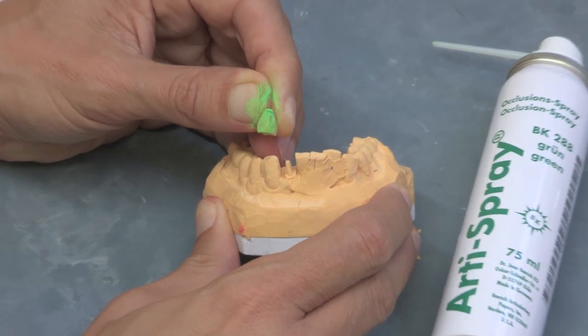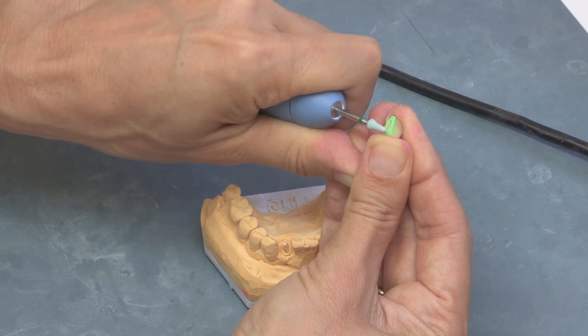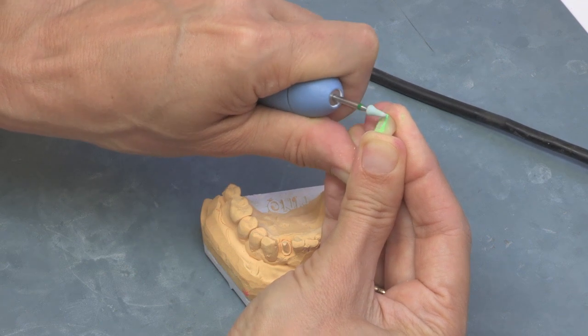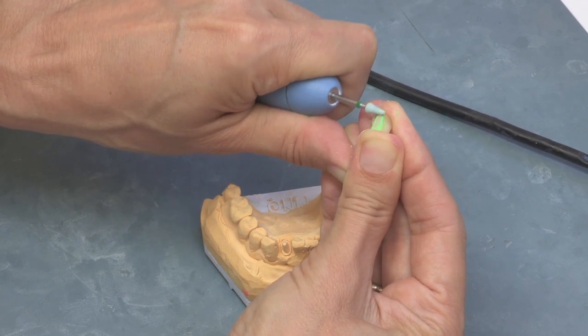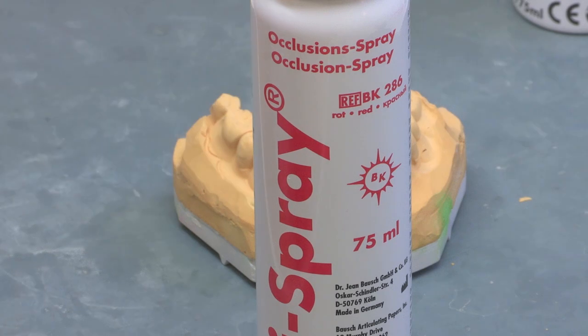Arti Spray contains physiologically safe ingredients and is filled with environmentally neutral propellants and meets the requirements of the European Council Directive 93-42-EEC for medical devices.